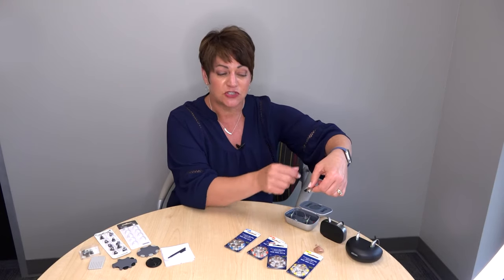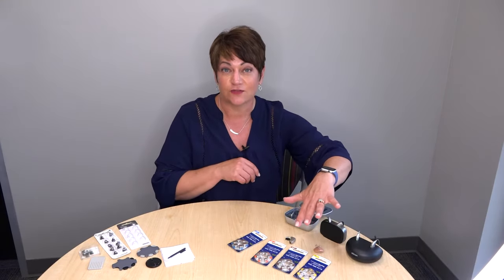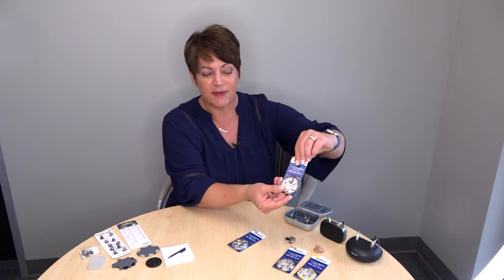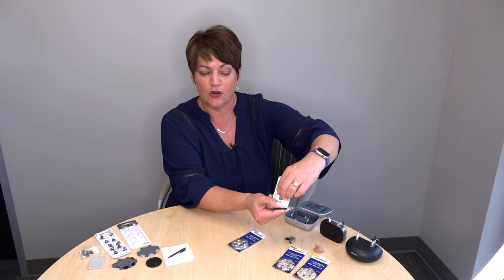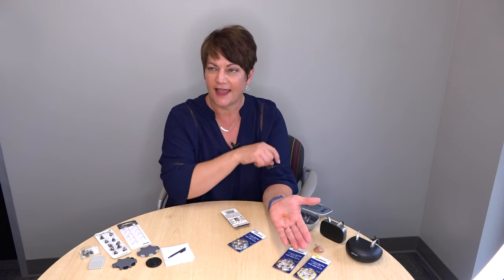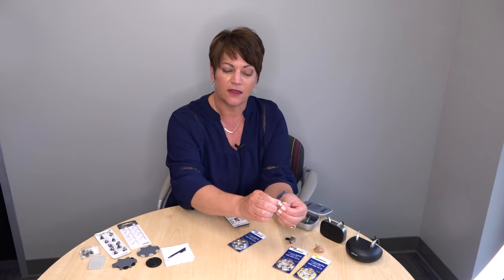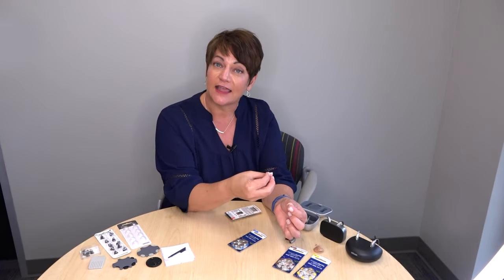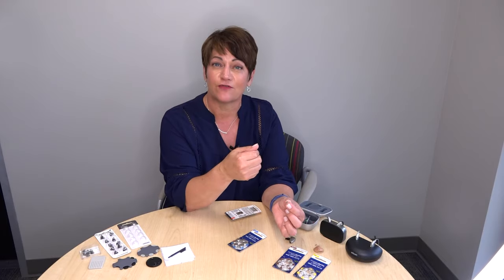When you change your battery, take the battery out of the door. Batteries come in four different sizes, and when you were sent home with yours, you would have gotten color-coded batteries. The battery should be dialed up at the 12 o'clock position. Flip the battery package over and open the battery door — the little battery goes right into your hand. That tab on there is saving the battery. To activate it, pull the tab off. This is called a zinc-air battery — air goes in and activates it.